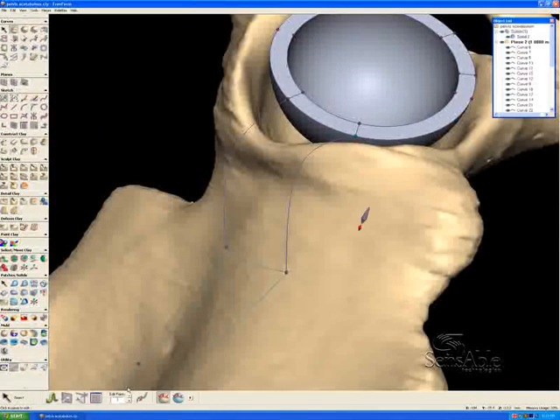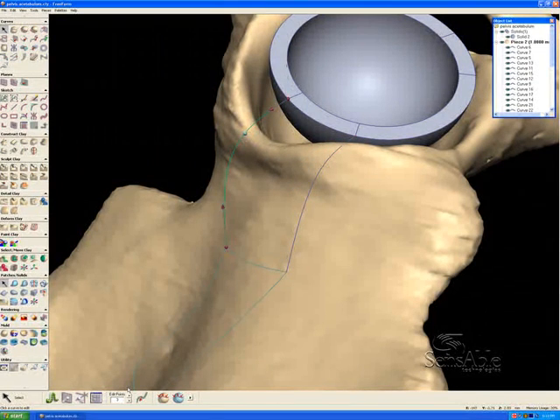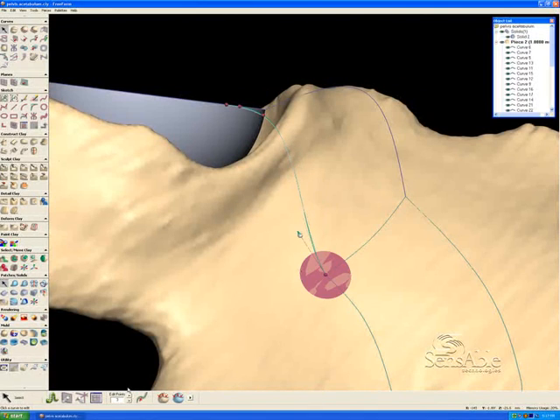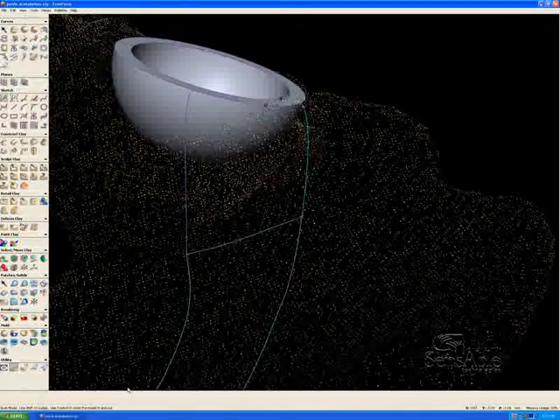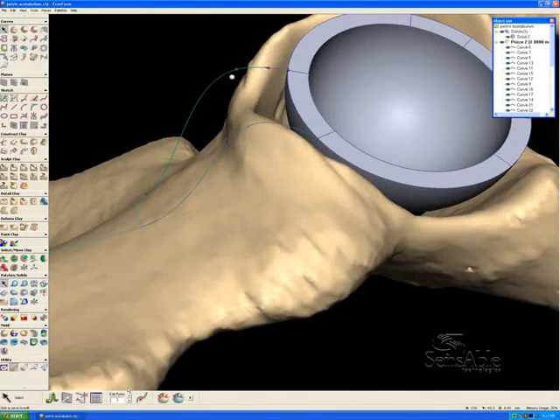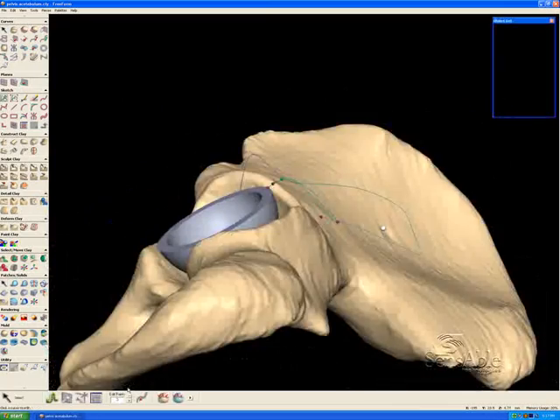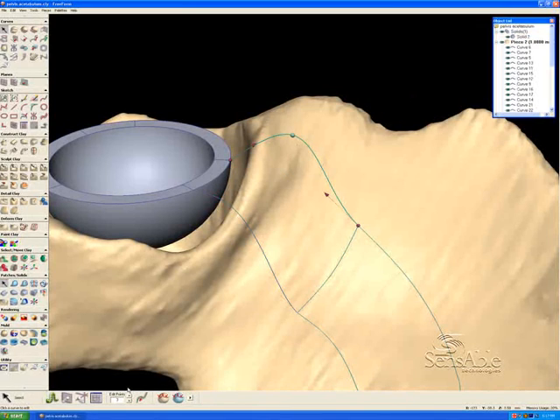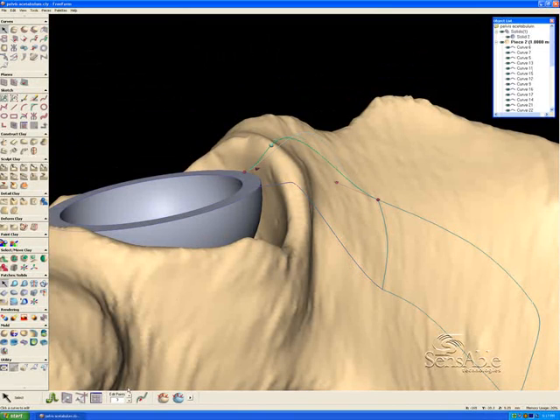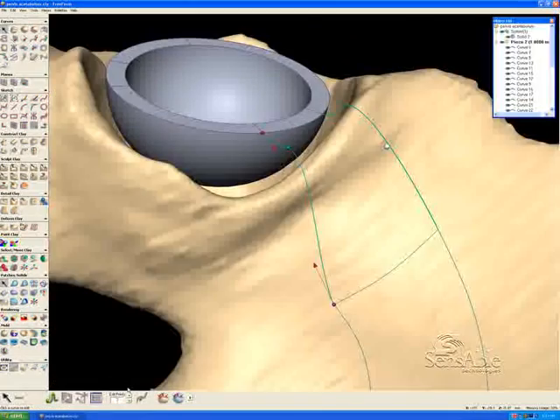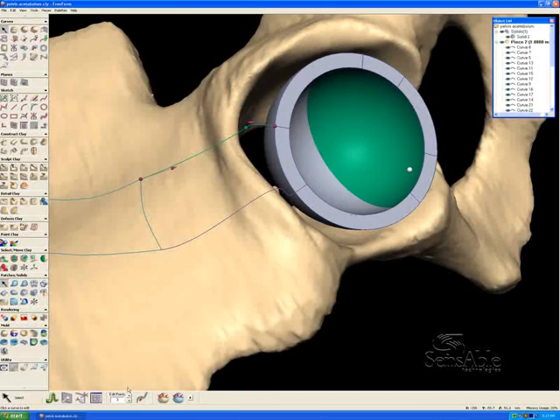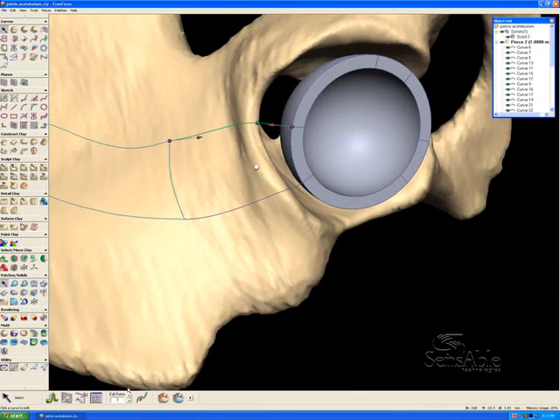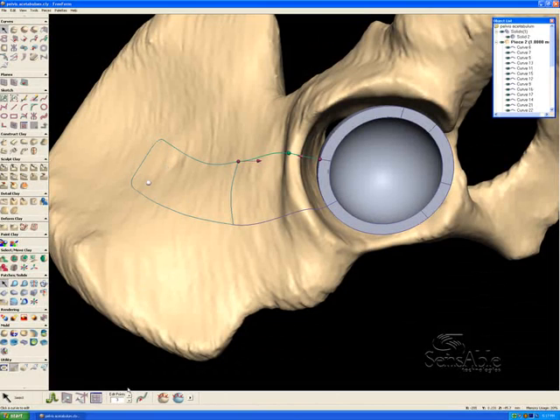And now I'm going to go back into that select tool, and I'm going to reposition these curves. This is the area of the underside of the tab that will loft over this acetabular periphery ridge. And what we're going to do here is just take these tangency handles, and I get that snap when I'm tangent to those adjacent curves as well. And I'm rotating using the G key and the movement of the haptic device to simply orient my view so that I know how this is going to undulate across the surface. So let's go ahead and create tangency as well with this shared curve, right along there. And what I want to make sure is that I give enough room around the acetabular periphery so that in the operating room, anything that's been changed using the ball-shaped reamer to dig out any adjacent bone material, that anything that's changed from the time that the scan was taken won't be affected. That's why the area of the tabs that's fitting to the clay is actually down here on the pelvis.